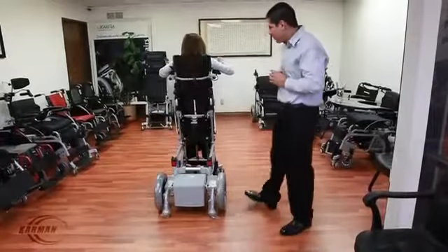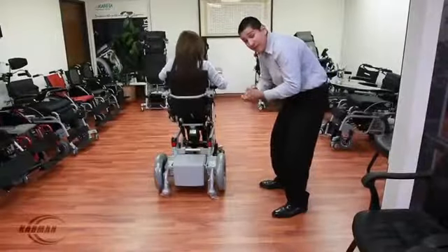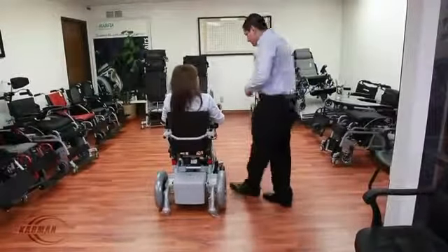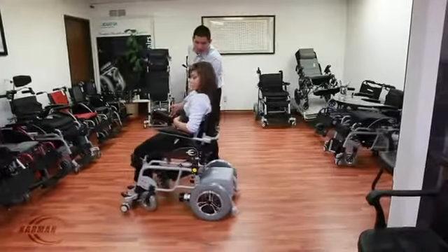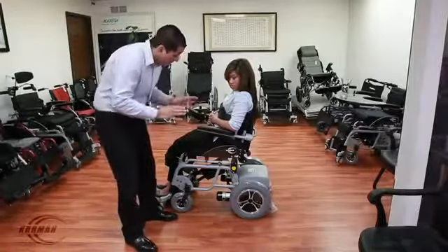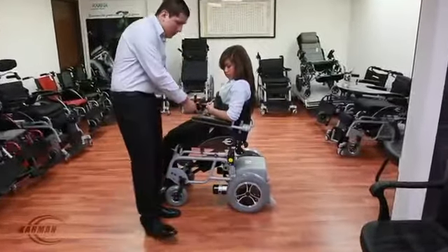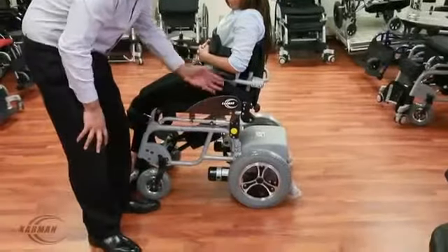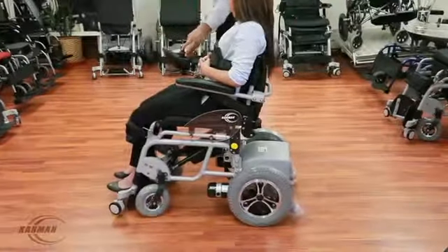Jan, why don't you go ahead and sit down for us please. As you see here, in 14 seconds, this frame is going to lock into the seat guides, ensuring an even safer, smooth ride. Just like that, back in sitting position. Let's show you guys more features. Here's the side of the chair — this chair has many features. Let me show you the entire integrity of the chair. Transparent side panels — these side panels ensure any rocks or pebbles from kicking up, or a jacket or sweater or shirt from getting caught in the rear wheels. It's added features that make this a much better chair.